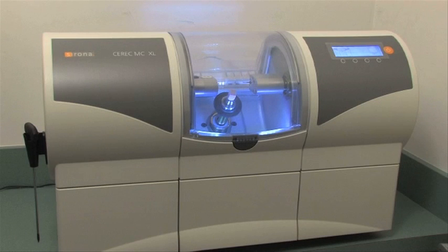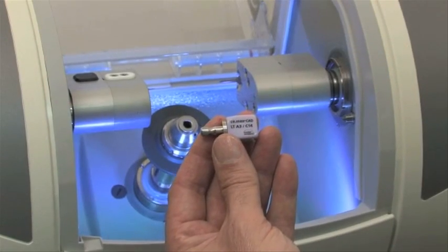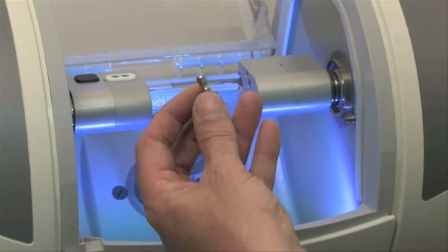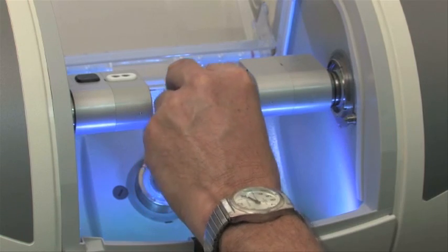Once the 3D computer modeling is complete and the proper CEREC material chosen, the 3D file is sent to the computer-controlled companion milling machine.